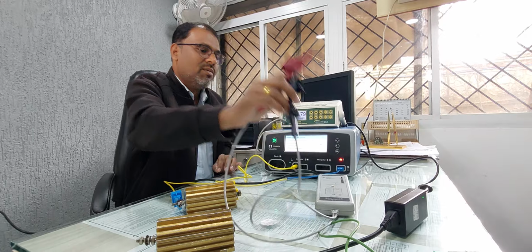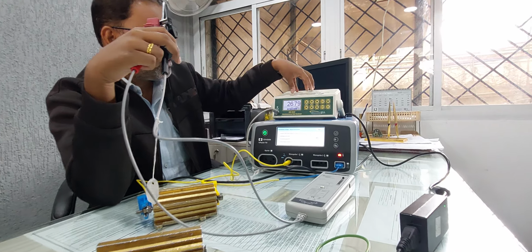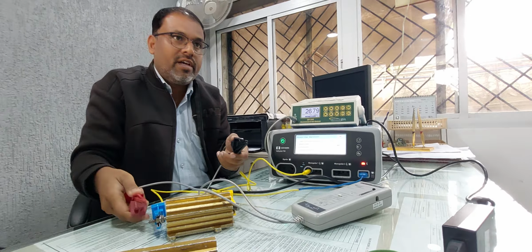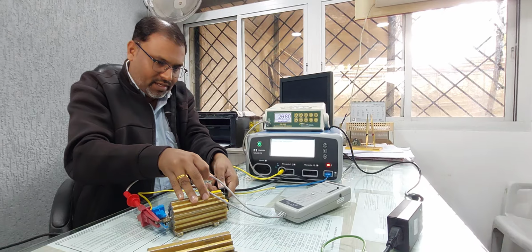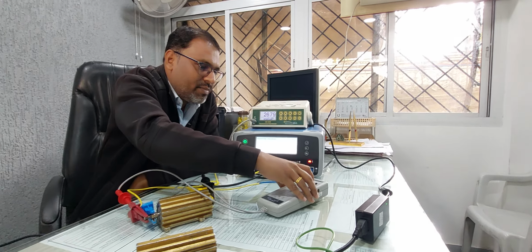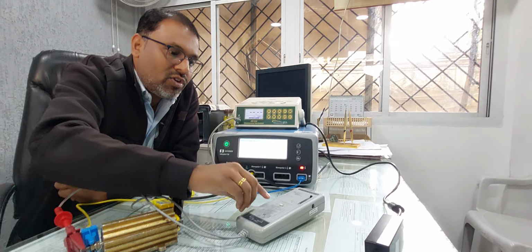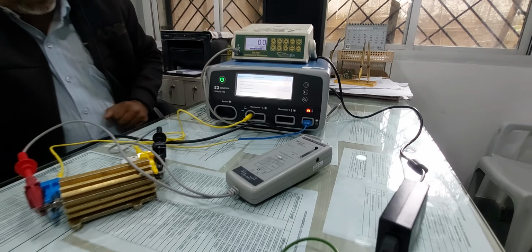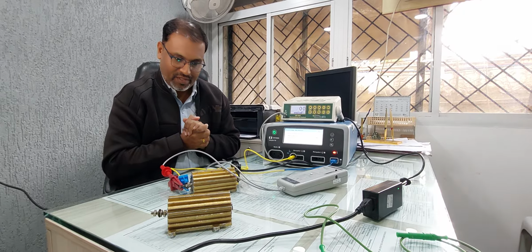After that, there is this differential scope probe. So one terminal we have connected to the electrosurgical analyzer, and the second terminal you have to connect here only, right? Like this. After that, just switch it on. Okay, and always remember it should be set on 1000:1 ratio. Now it is on. Now our basic setup is ready, right?